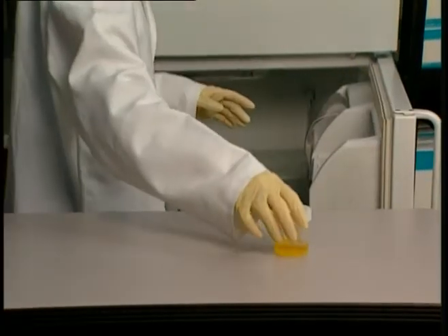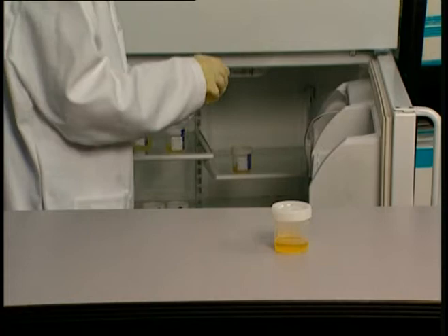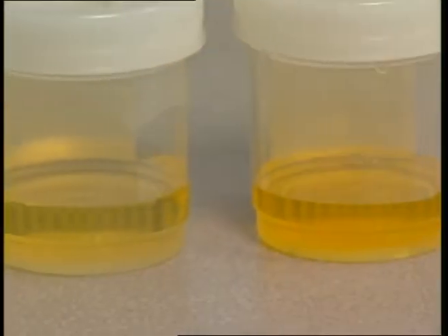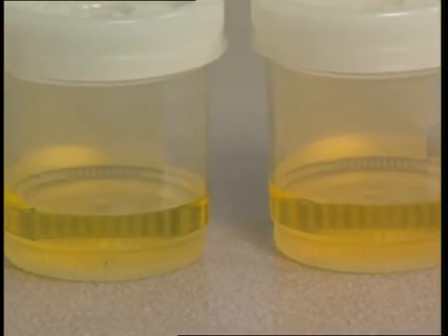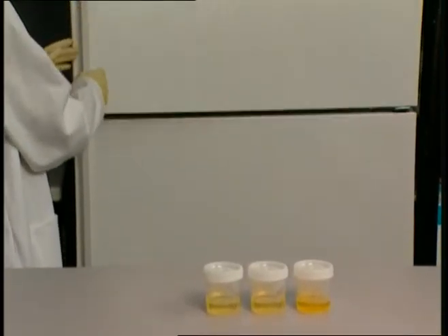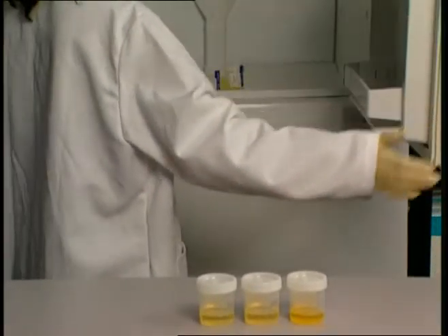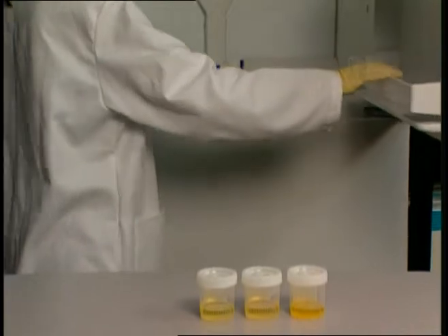For best results, do not centrifuge or add preservatives to the urine. Test immediately after sample collection, preferably the same day. If specimens have been refrigerated, they should be brought to room temperature prior to testing.